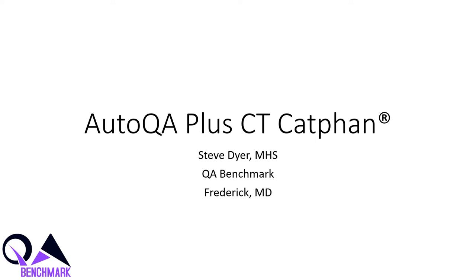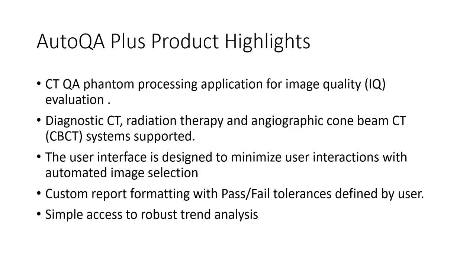Today I'm going to review our CT QA application AutoQA Plus CT CatPhan. AutoQA Plus CT CatPhan is a Windows-based processing application for CatPhan images. This product is the migration of our CT AutoQA Lite application to a new development platform with an updated user interface and improved reporting functions.